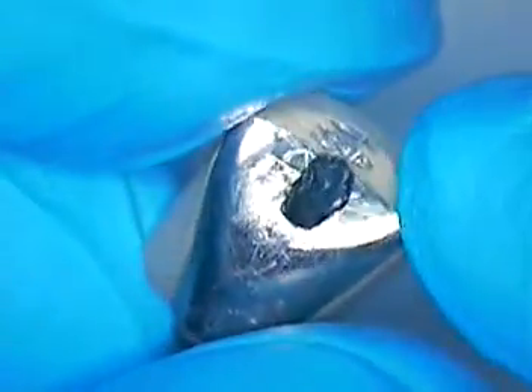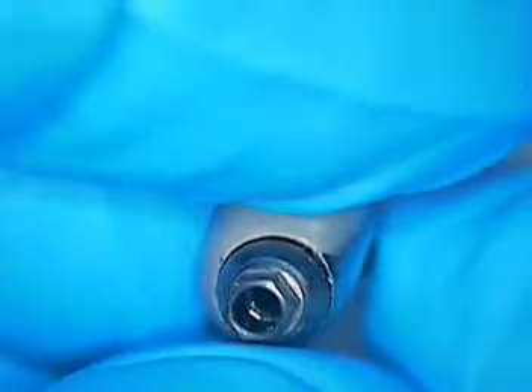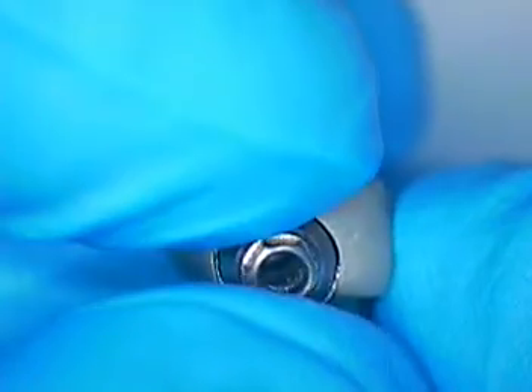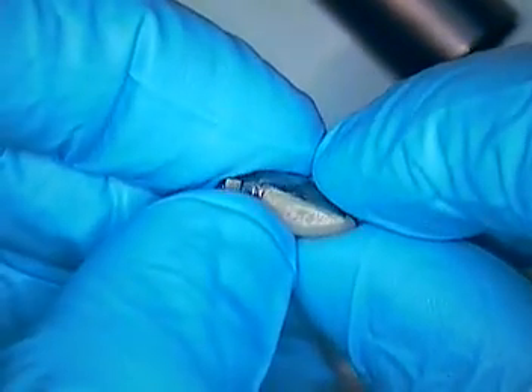This is Dr. Jerry Cuomo. I just wanted to show you the first of a series of videos that you are going to be seeing — this is what came in the door. Hopefully we will have a nice result and be able to help more viewers out there who have implant problems and broken screws. Before you have them replaced or removed, there is always an alternative — there is always a way to try to do it non-surgically, so you don't have to have your implant or fixture removed. This could stay in the mouth; there are ways to get around this without more expense and trauma to the bone.